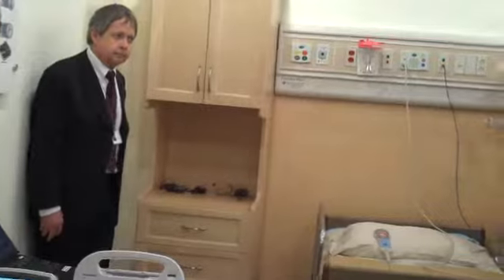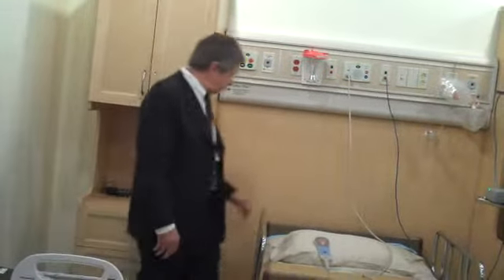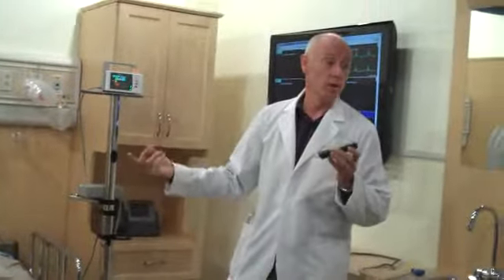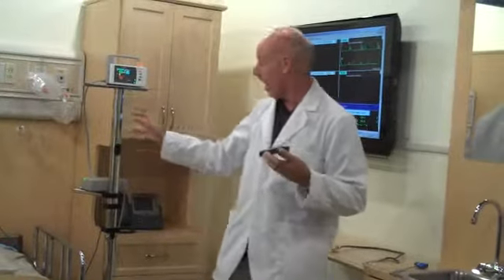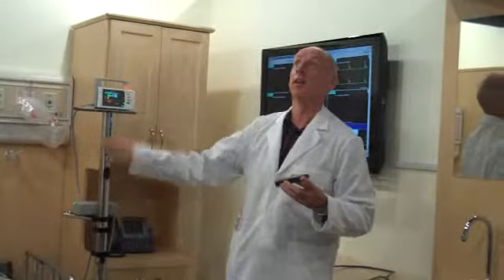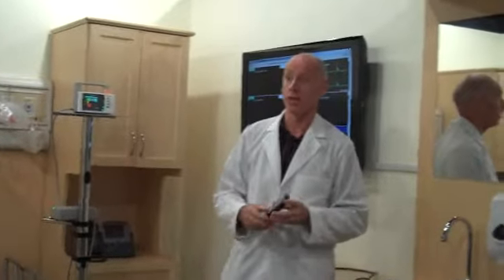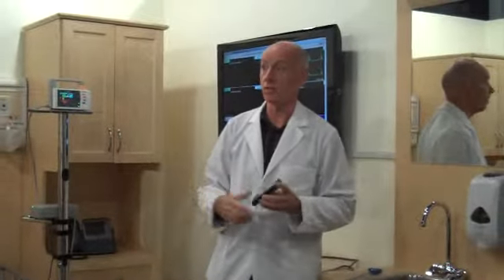So when I answer the phone, you can see now, I'll press the mute button, but you can see that the nurse is in direct communication, two-way communication, and the nurse can say, oh, I see you pressed the water button. I'll be there in 2 minutes. I'll bring a big glass of icy cold water with me. Okay? So that's really helping that patient. He's not sitting there listening to the overhead page and wondering if and when someone's going to get to him. He knows immediately what the situation is.